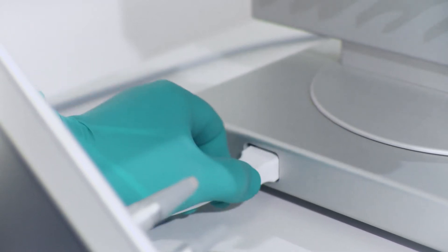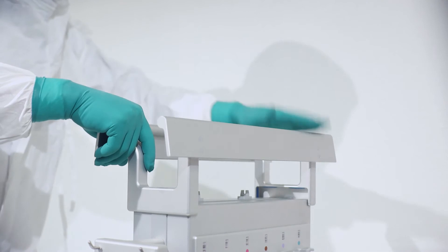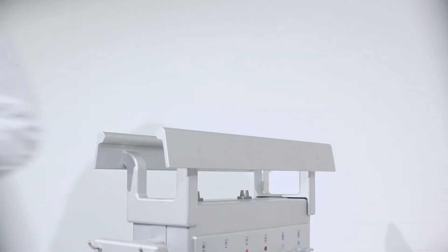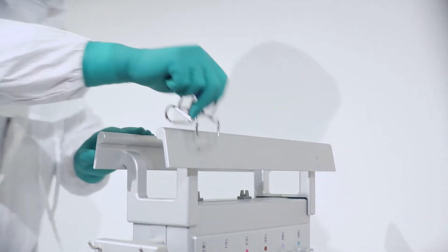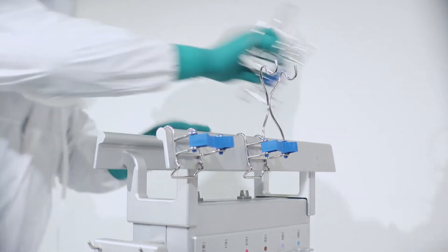Ensure that the power cable is the last to be plugged into the compounder. A special holder can be fitted on any Medimix which will hold syringes, bags, vials and bottles keeping the priming volume to a minimum.